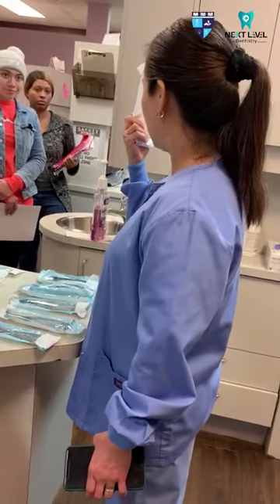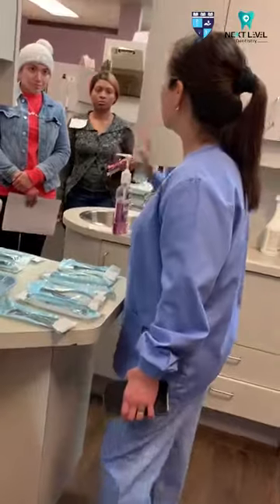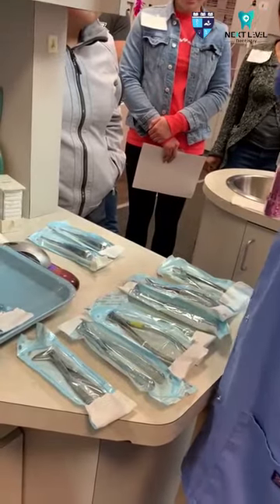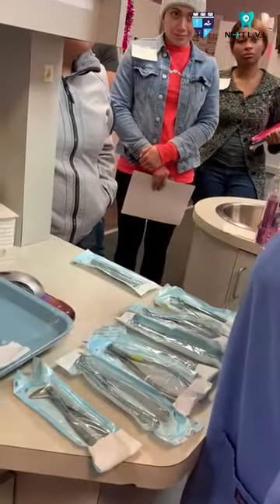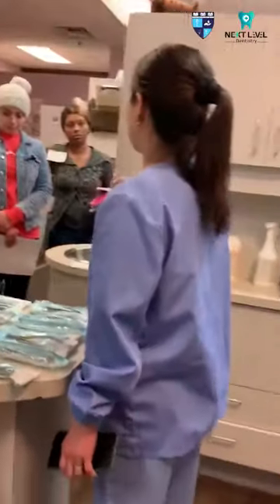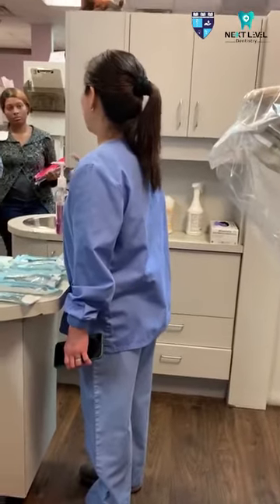This is for a smaller tooth. In case the tooth has been broken down while the doctor is taking it out, we have the root tip elevator — we have the crier. You also have to have the suture available at the side, in case the doctor wants to suture it up: the suture holder and the scissor.